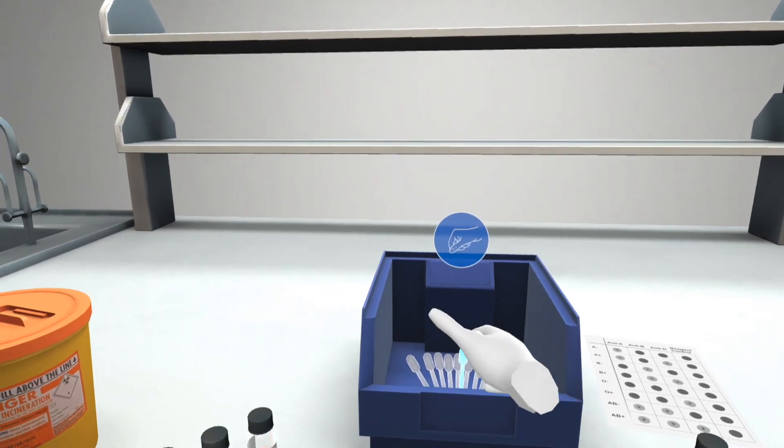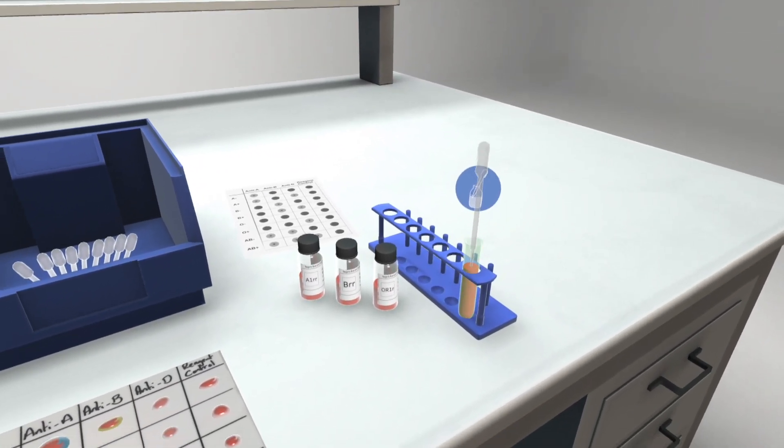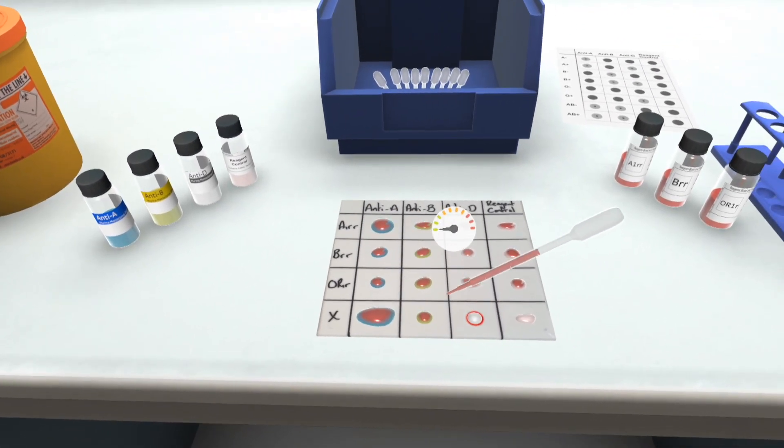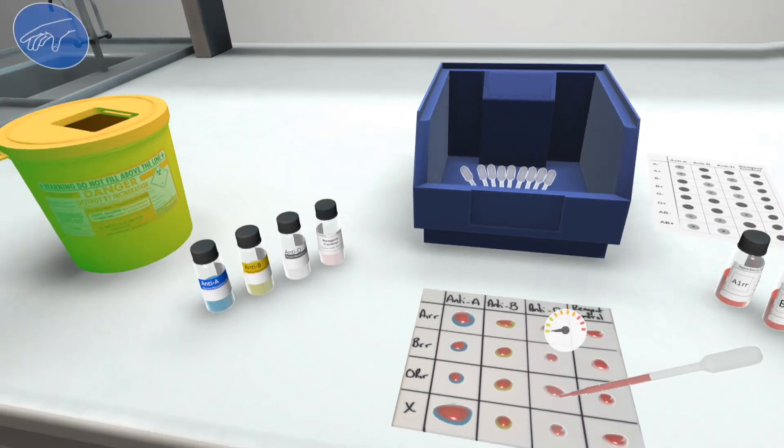Take their blood sample from the test tube and drop it across the tile segments. Great. You're all set.